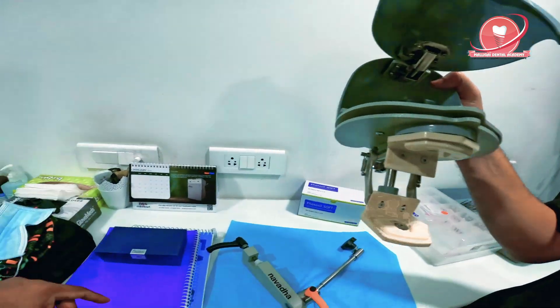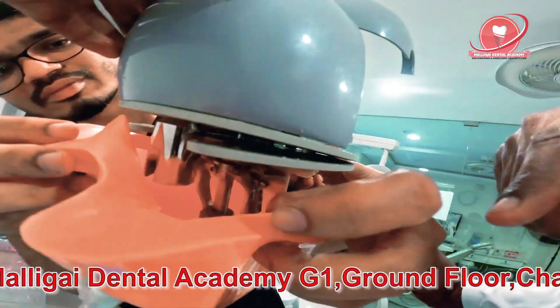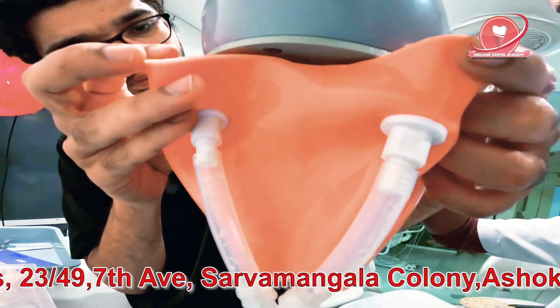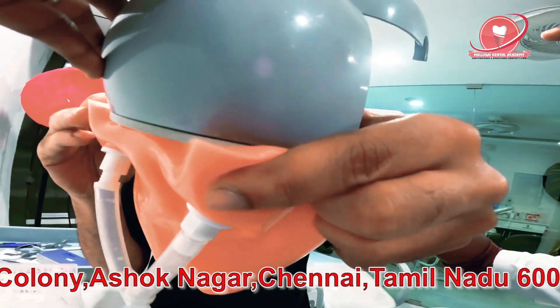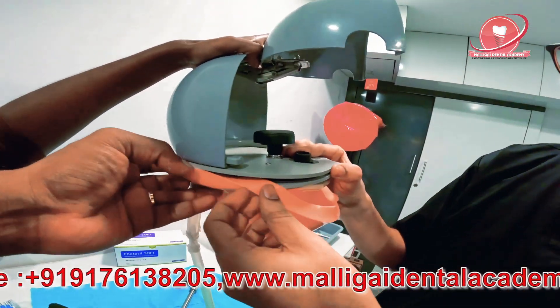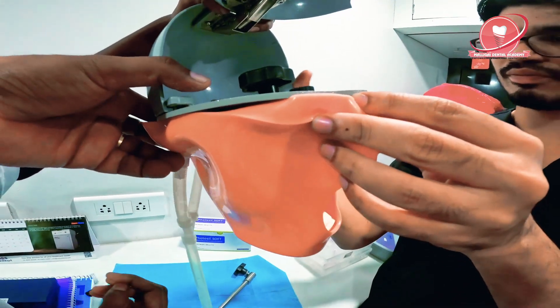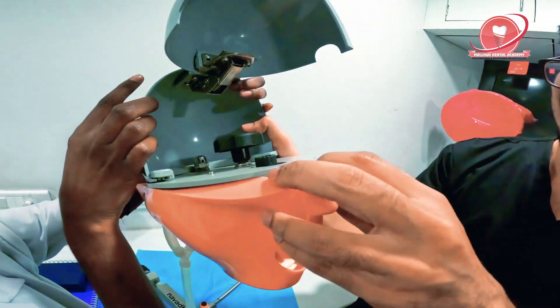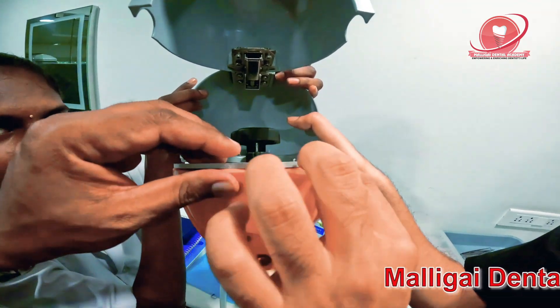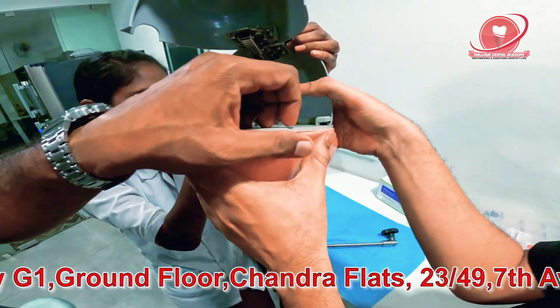Now I am going to show you how to fit this rubber — the fitting of this rubber. First I would recommend you fix it in the back like this. In the back there is a slot — just make sure you push the middle part nicely and everything slides slightly inside. This C-shape gets locked with the metal thing there. Make sure you account for this gap — you have to slide the jaw. Sometimes when you hold it, it gets closed, and you might find it difficult. The lower component should not be held while you fix it. You might need somebody to help you, or you can fix it on the head first and then do it.